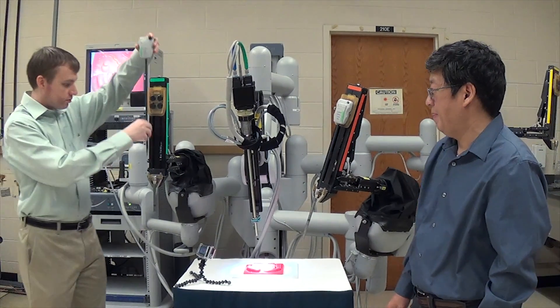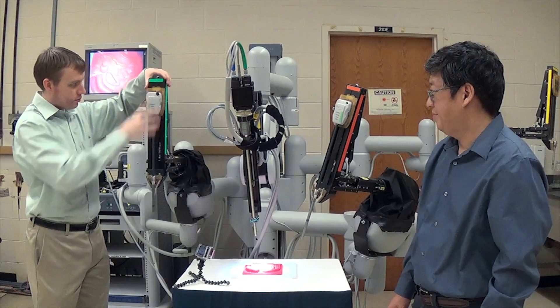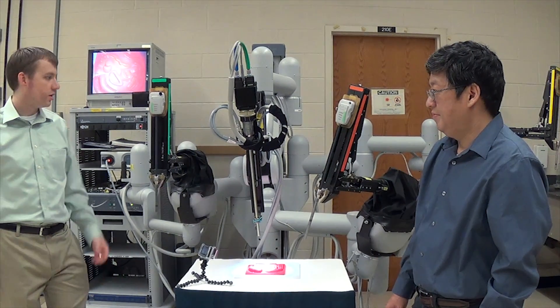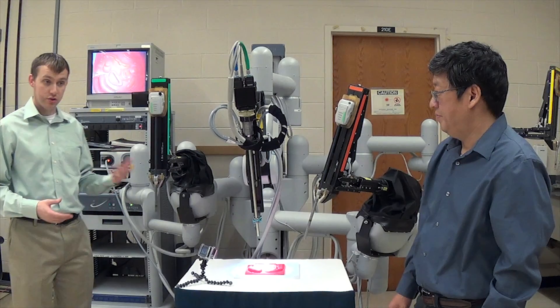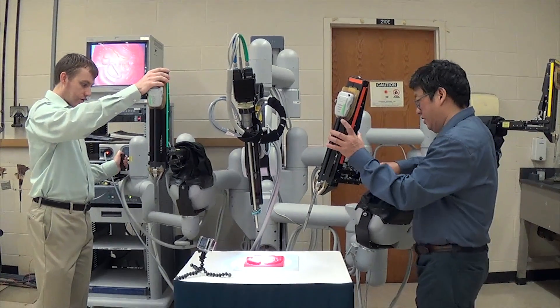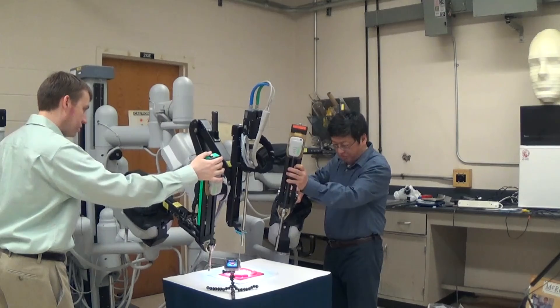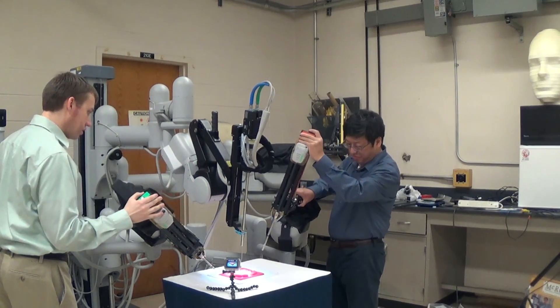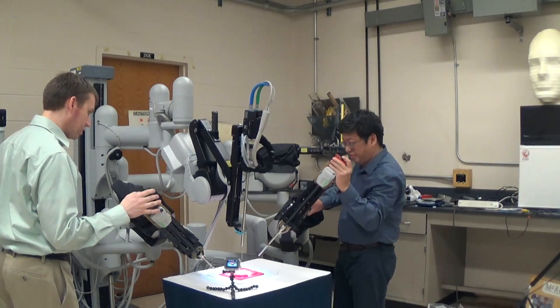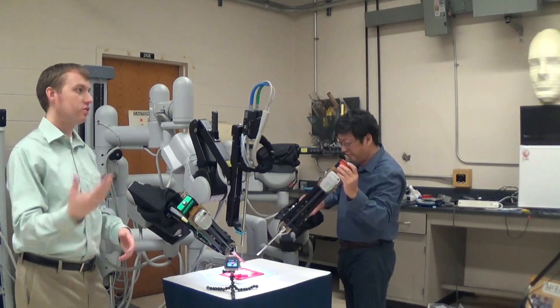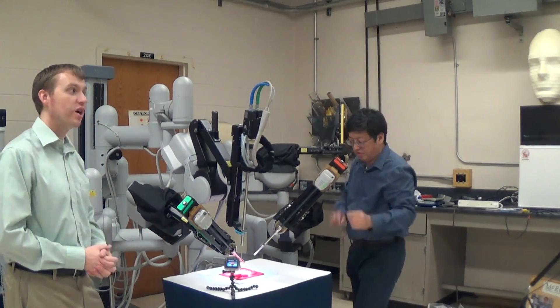I'm going to go ahead and insert mine now. Once the two grippers are inserted, you then have to move them into position. So go ahead and rotate. And then everything is about trying to put it in the correct position so that it is usable in the optimal response for the surgeon.